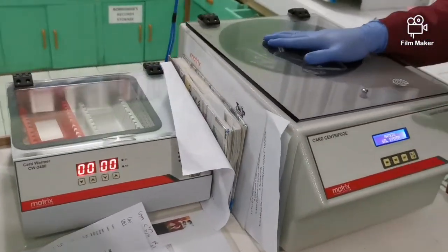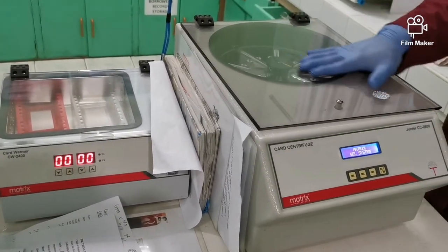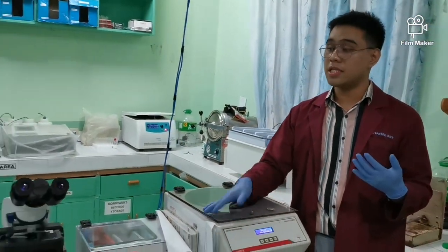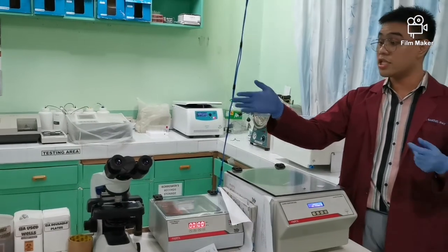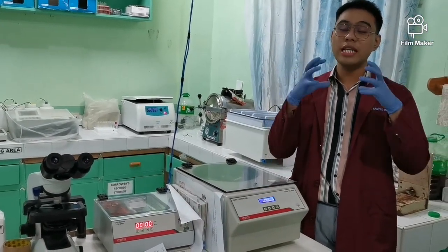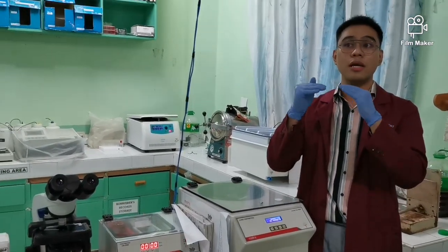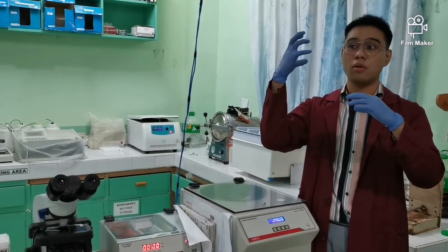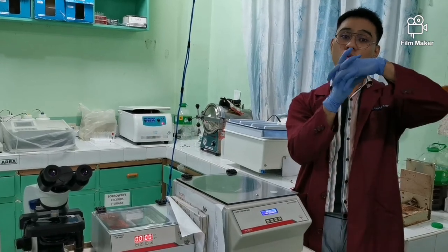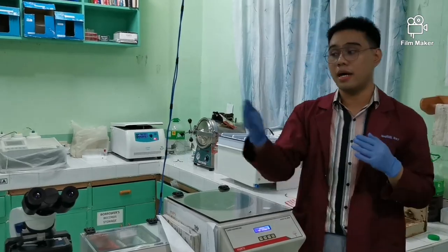This is its centrifuge. It's like a specialized centrifuge for that gel system. Talking about the gel system, it is made up of polyacrylamide gel, okay? So what does the polyacrylamide gel do? It acts as a mesh. So when agglutination happens, when the blood to be transfused and your blood are not compatible, a reaction occurs, and the polyacrylamide gel will not let it go down. That's what I showed.